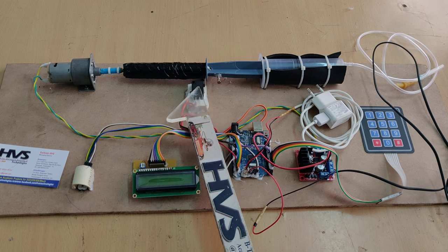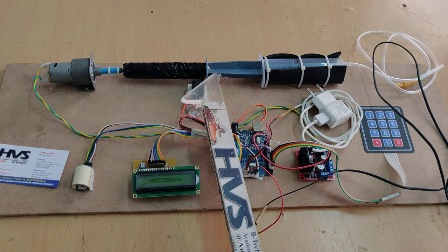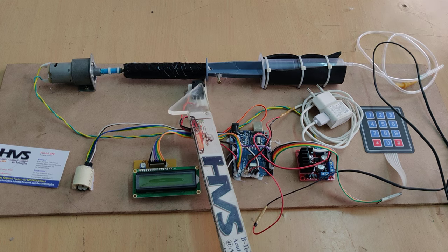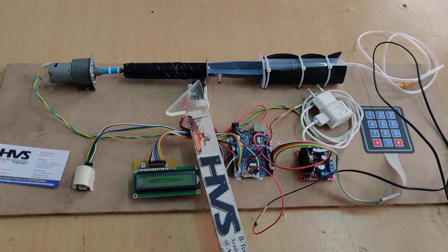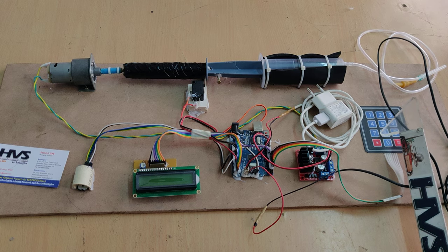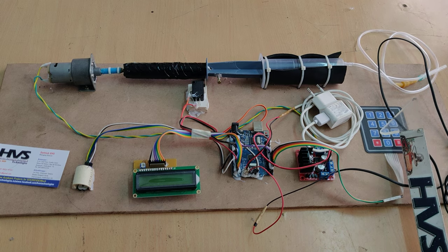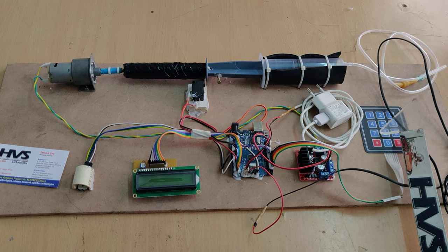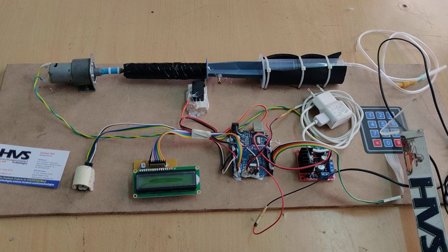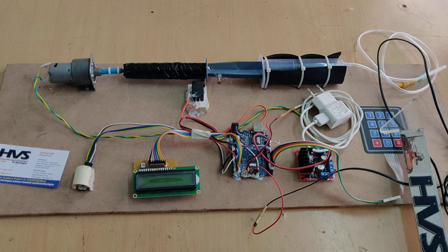A limit switch sets the initial limit position for the injection. The 4x3 matrix keypad is used to enter levels. In this project levels are set from 000 to 999 in three-digit format — for example, to enter 30 levels you type 030.